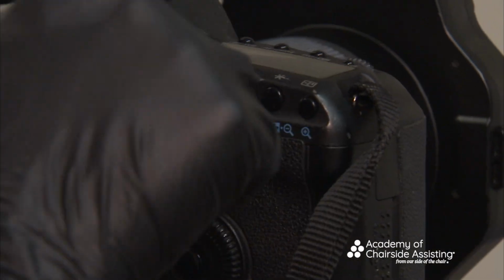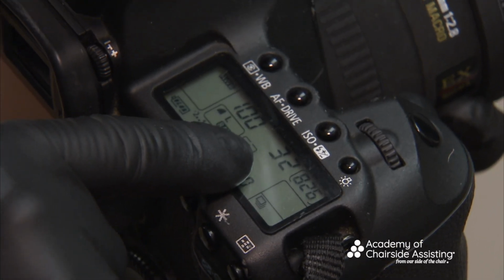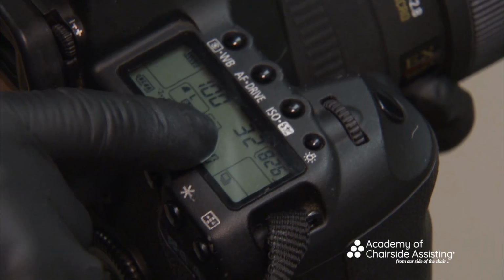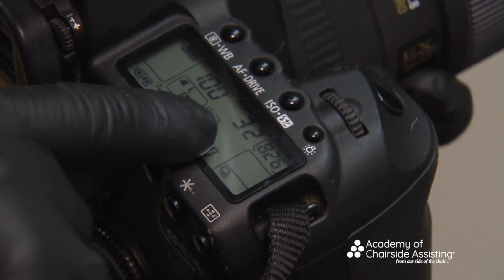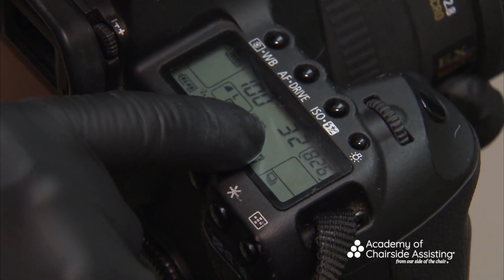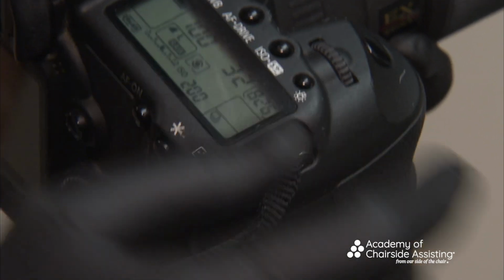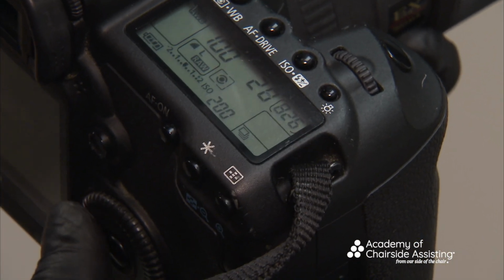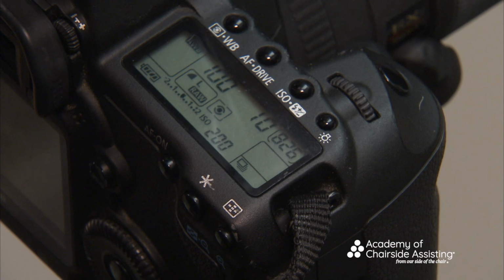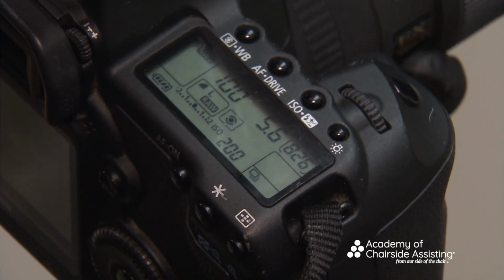The other thing is, don't forget to change your f-stop. You'll see here that it's 32 or 22, just based upon your camera, okay? Remember we talked about the lighting and the camera, but I want you to think about this. I needed more light inside the mouth. And so now what I'm going to do is just scroll this down some, and some people like 8 or 9. On this camera, we're going to use a 5.6.